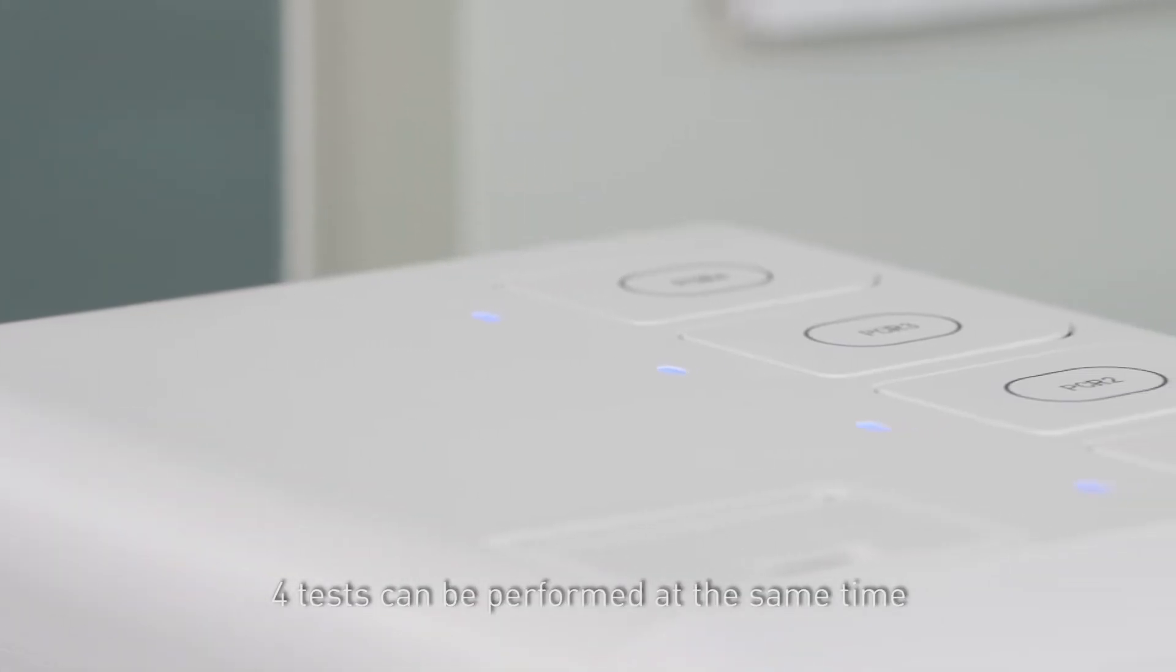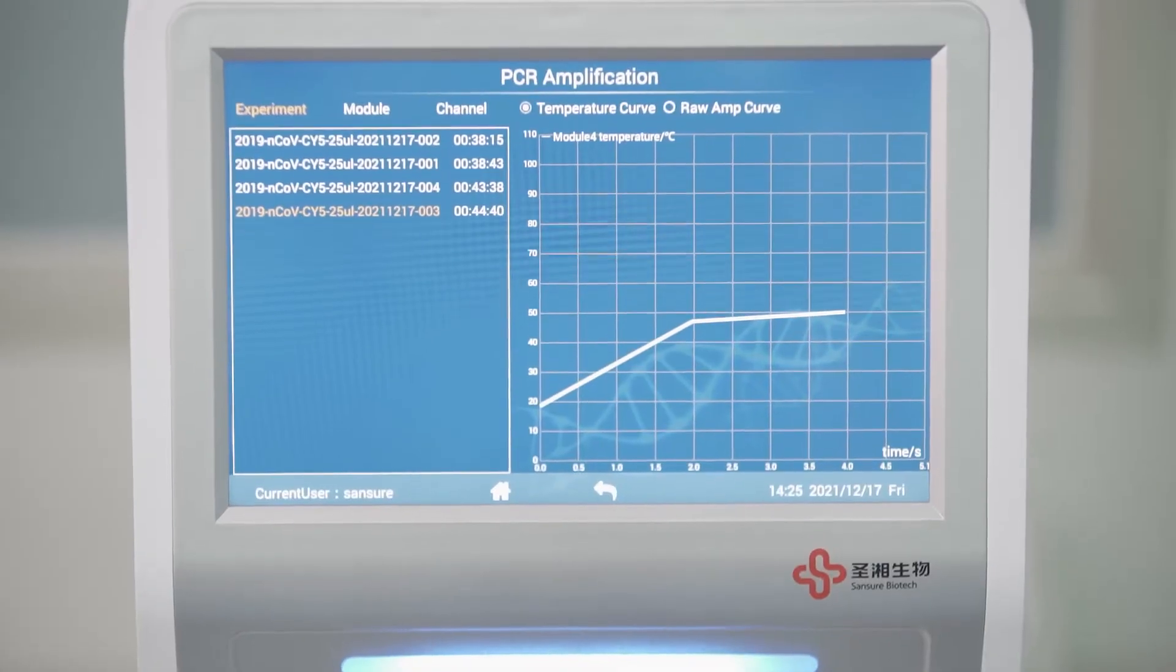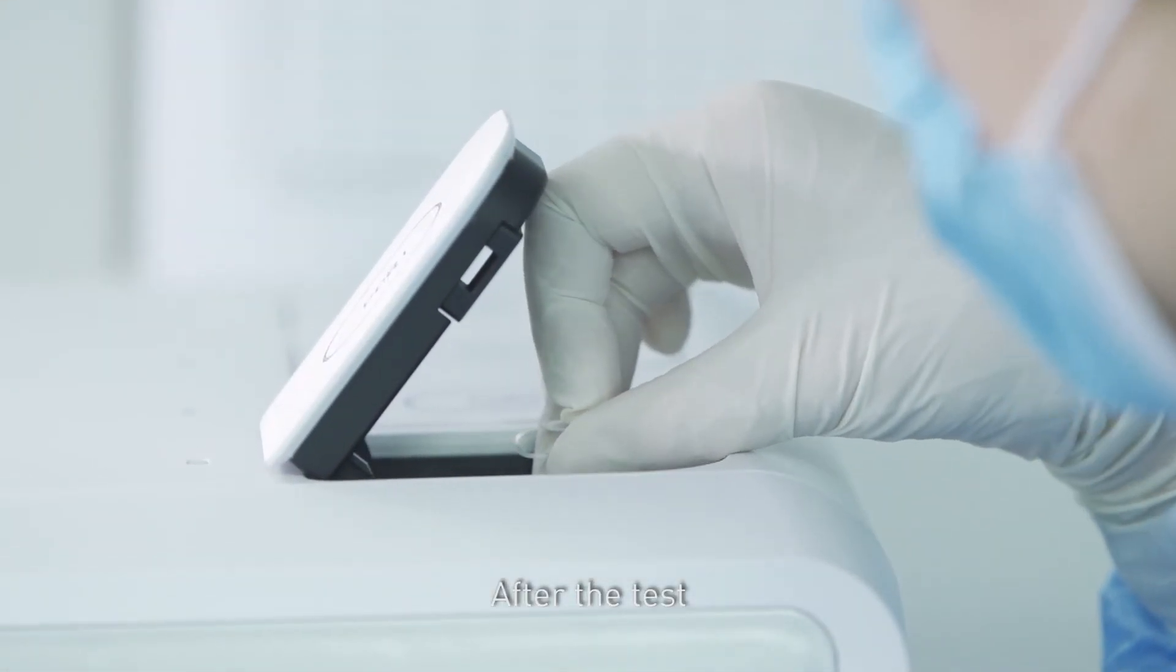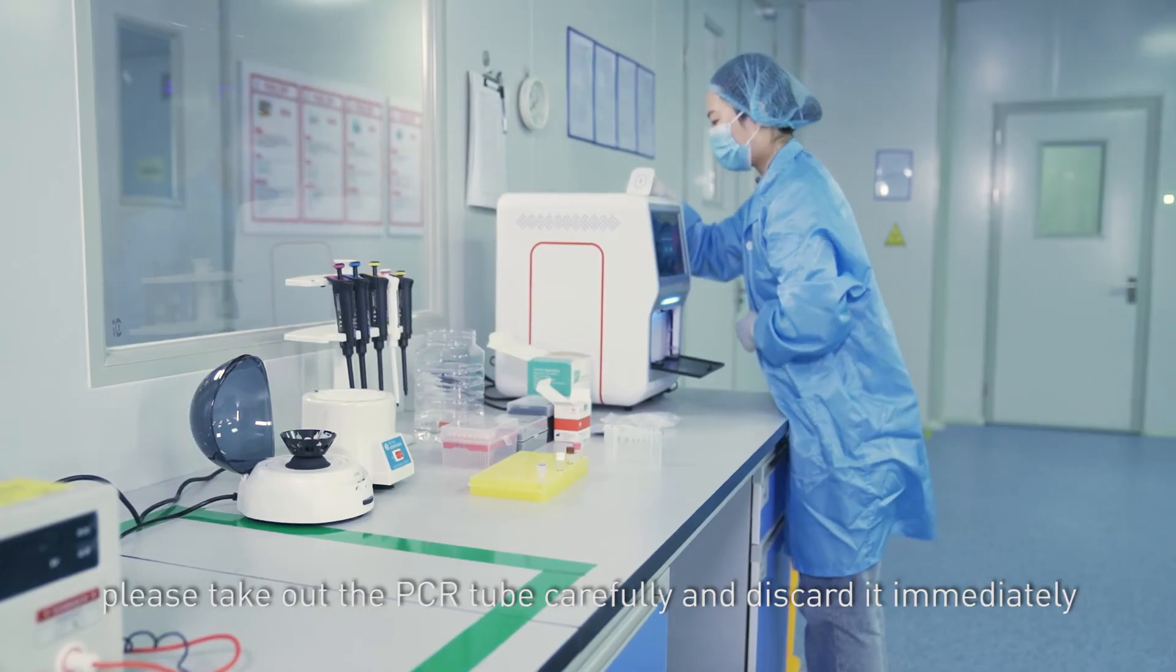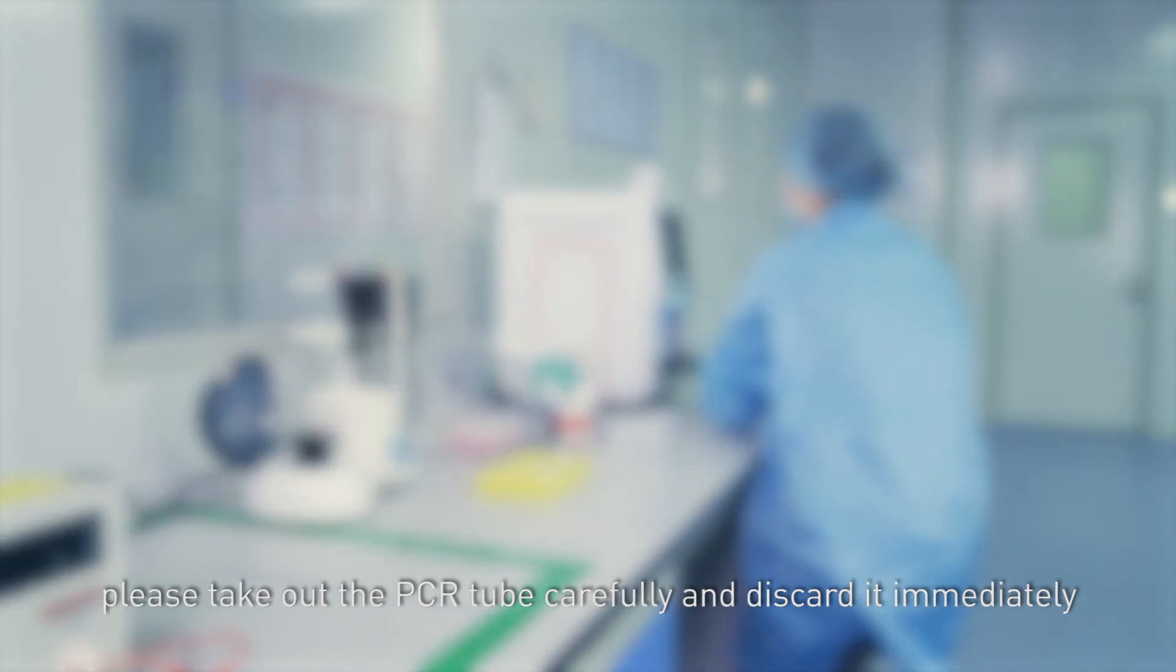4 tests can be performed at the same time. After the test, please take out the PCR tube carefully and discard it immediately.